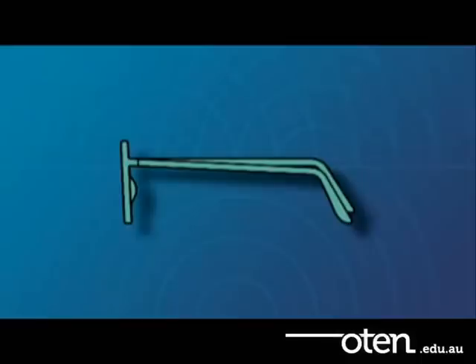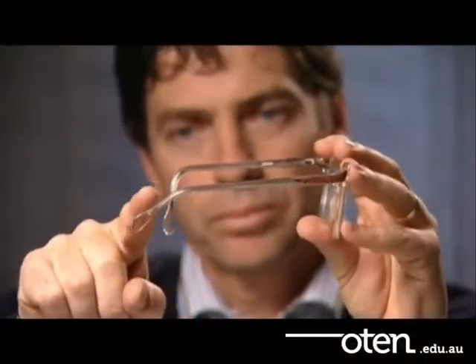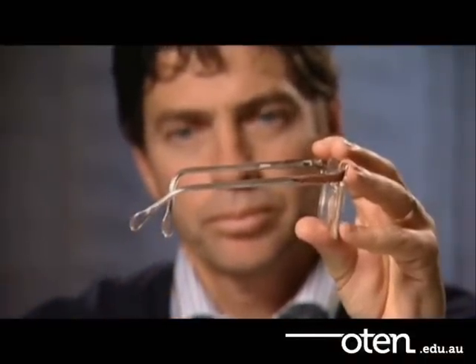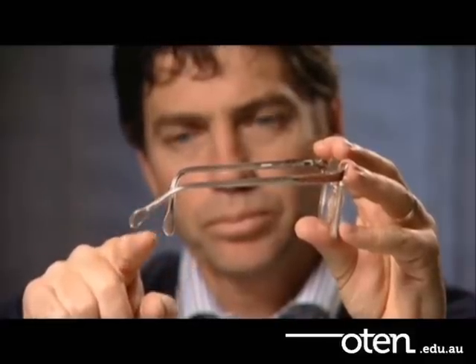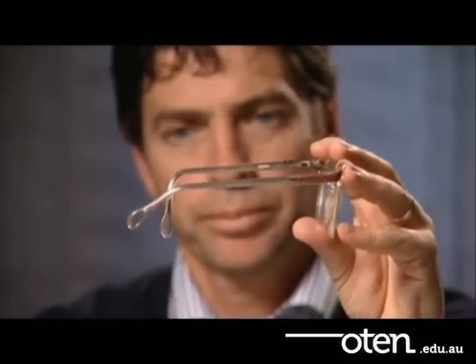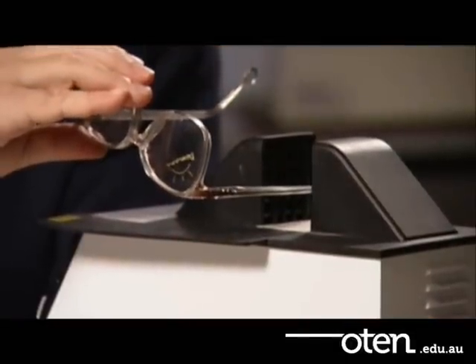The alignment now moves towards the rear of the temples for the temple turned down or angled down. These need to be the same length and angled to one another. If they're not, fix the misaligned temple bends.